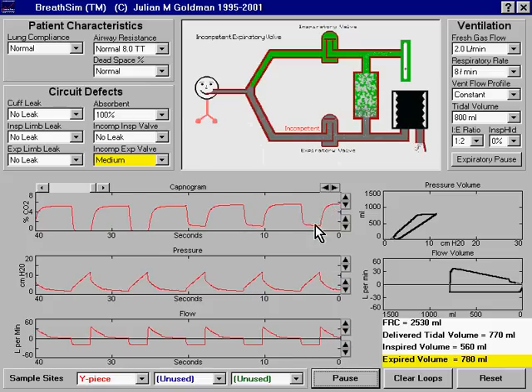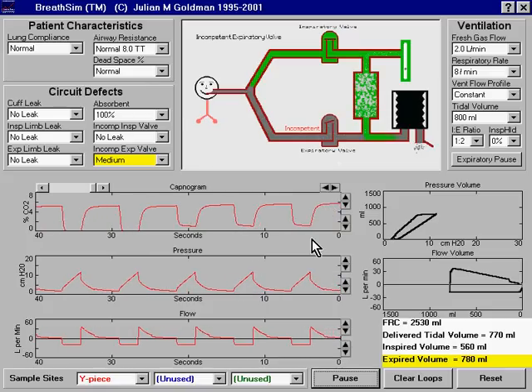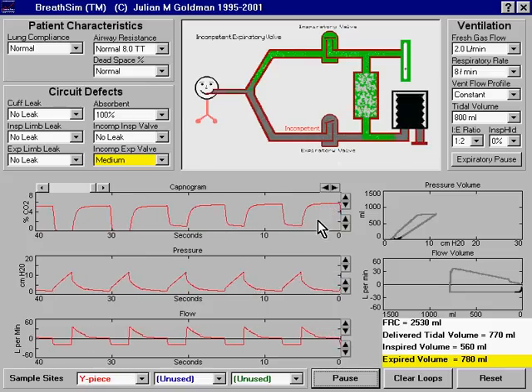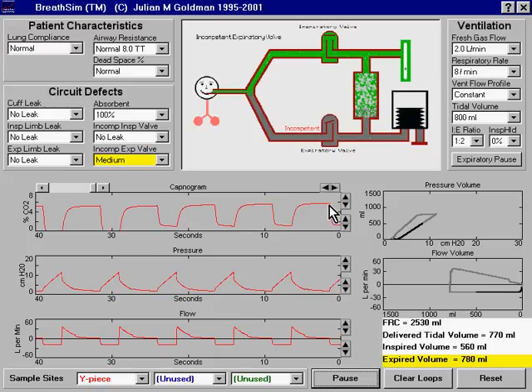After a while, with rebreathing of CO2, the expiratory portion of the capnogram, or the end-tidal CO2 value, will increase as well.